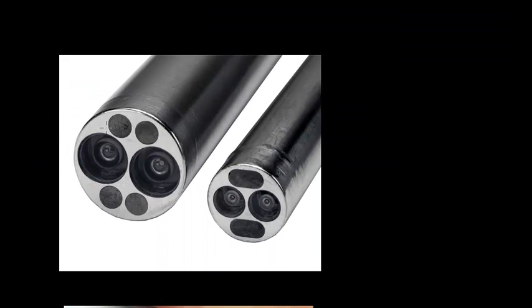Here's an end of an endoscope, which is used to examine an area of a patient's body. You can see the light sources here and each one of these would be a bundle of optical fibers, sending light along those bundles to illuminate the area under investigation.